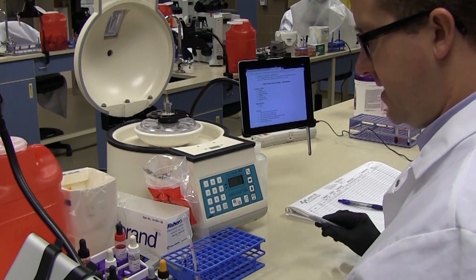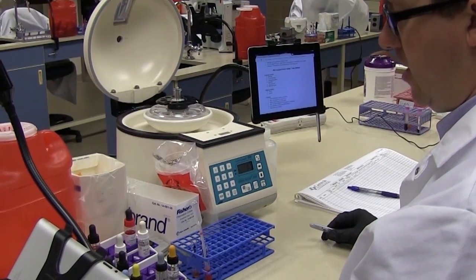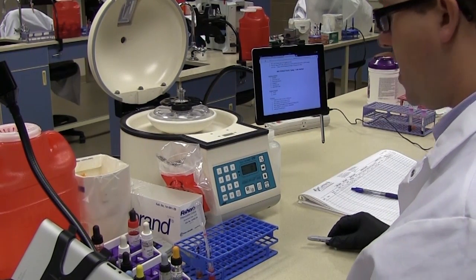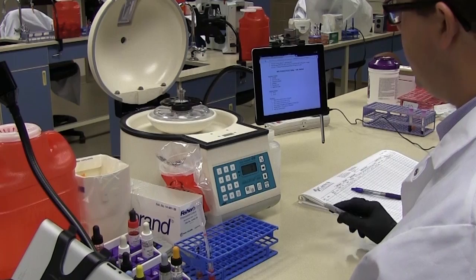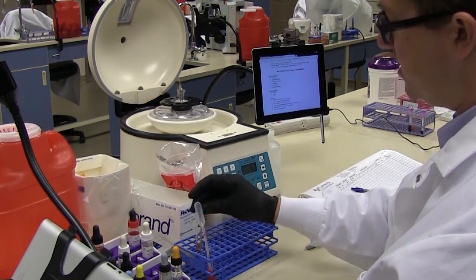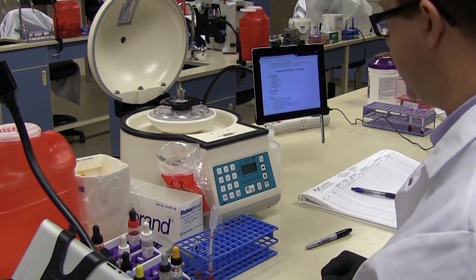Alright so I have taken my reagent rack out. It's been sitting out at room temperature for an hour. Now I have not mixed the reagents but as far as temperature goes it's ready to go. I've taken my patient's EDTA tube spun it down and here I have the plasma and here I've already made the 3% red cell suspension.